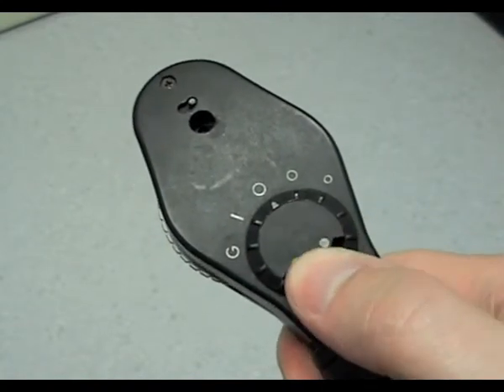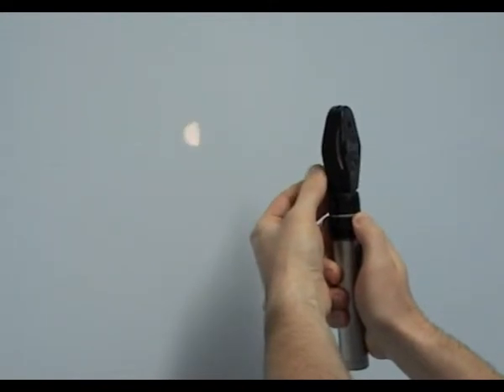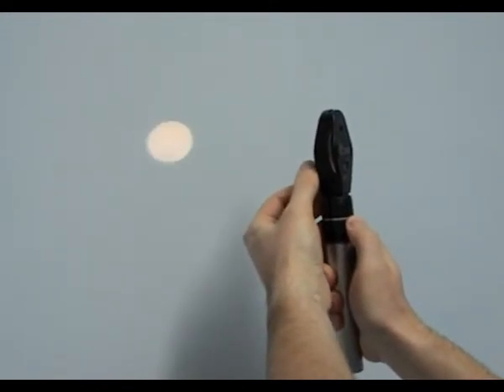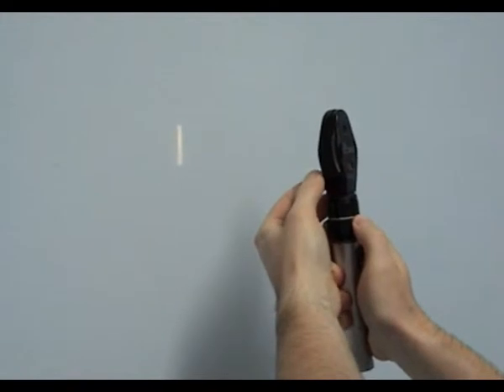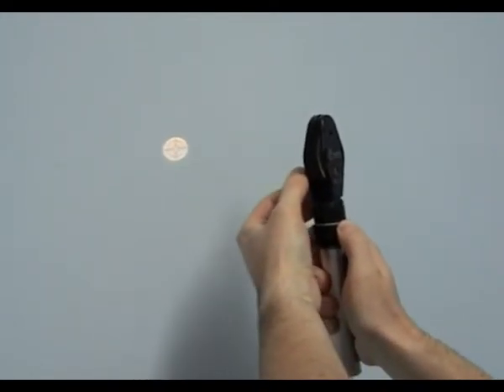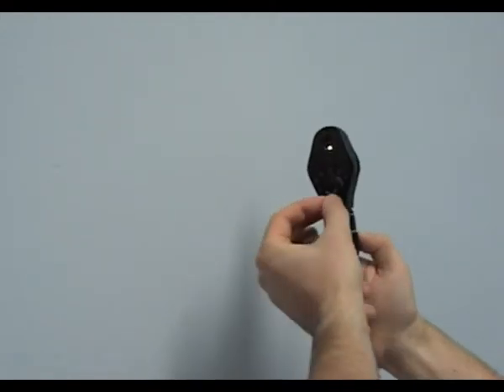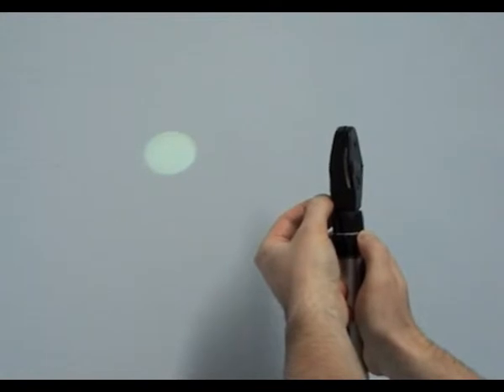The filters can usually be selected using a dial on the front of the ophthalmoscope, such as the blue filter, which is used when examining the front of the eye with fluorescein dye. Similarly, the size of the aperture can be altered using the same controls. A smaller light may be more useful in a patient who has not had dilating drops instilled, or has a small pupil.